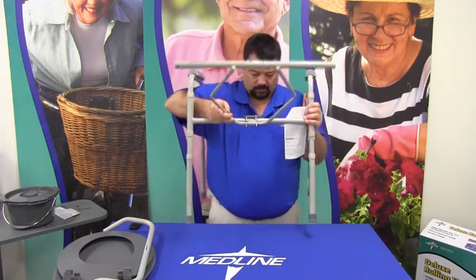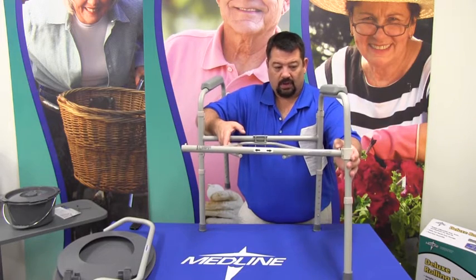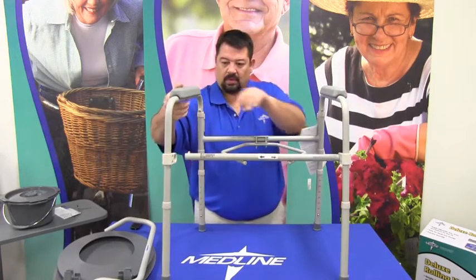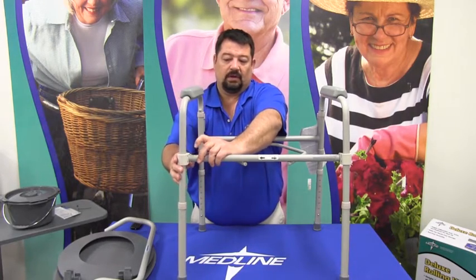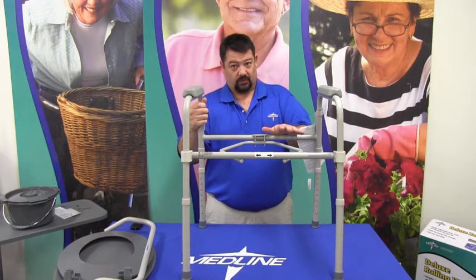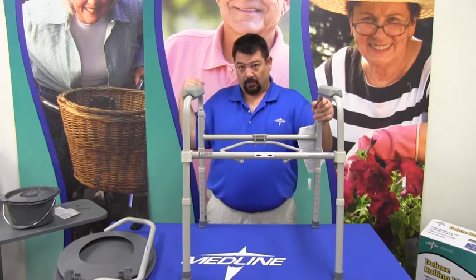To assemble, swing the arm around — there's a plastic connector port, you simply slide it over, push the button in, and you hear that lock; that locks in the leg. Same thing on this side: swing it around, push this tube into the seating bracket, push the button, and it locks into place. At this point this is how you would see the framework if it was going to be over the toilet, because the seat and lid or the backrest wouldn't be used — it would interfere and push away from the bowl of the tank.